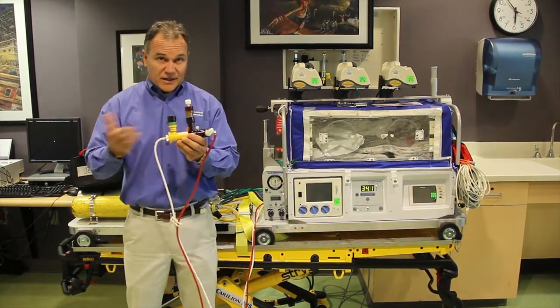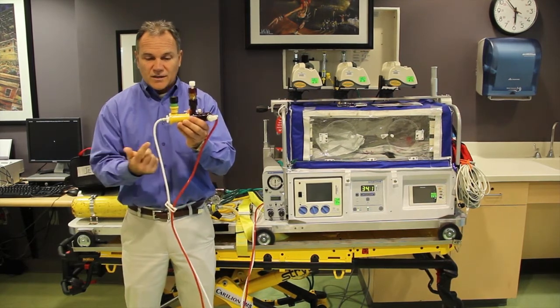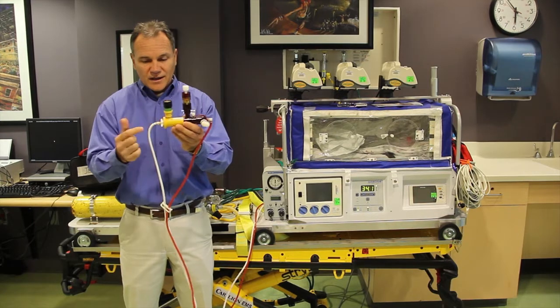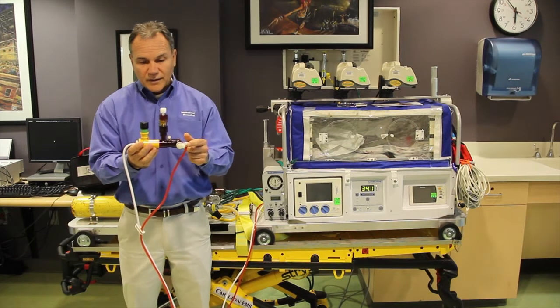The Phasetron is actually the interface between the patient and the ventilator. The way it works is there's one white line coming into it, which is the inspiratory limb, and there's a red line which is the monitoring port right here.